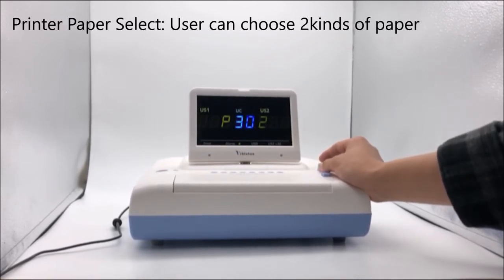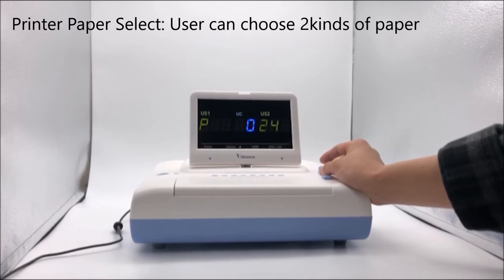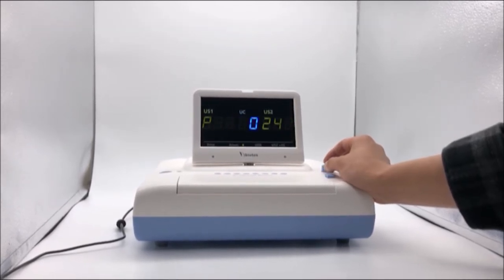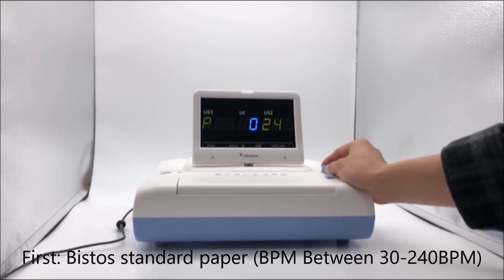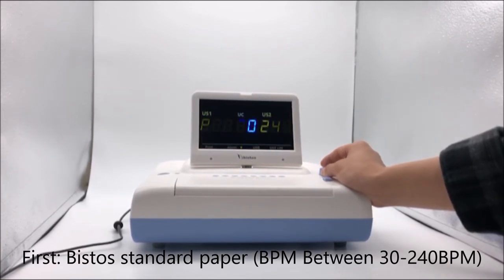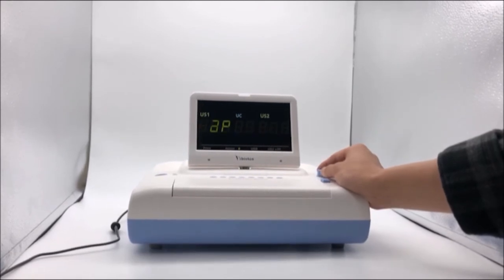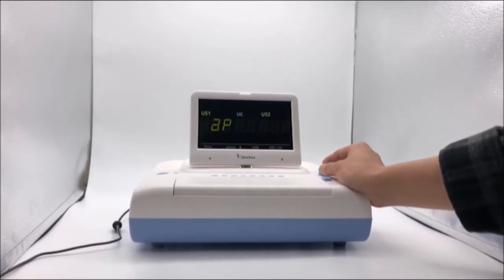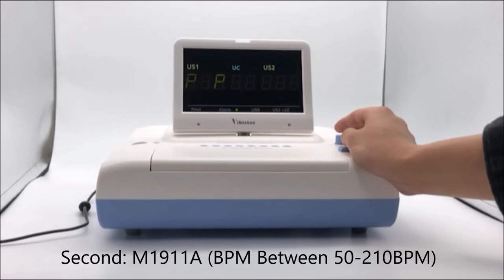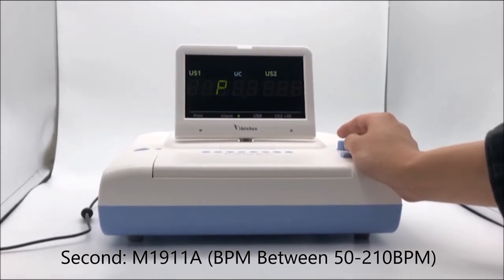Printer Paper Select: the user can choose paper format. First option is standard paper with a range of 30 to 240 BPM. Second option covers 50 to 210 BPM.